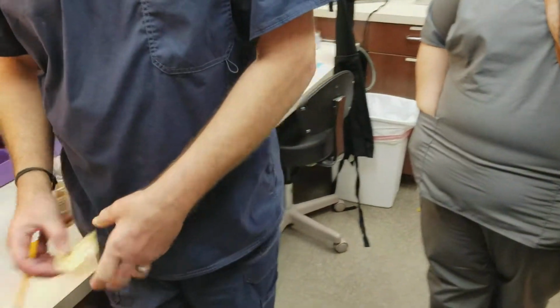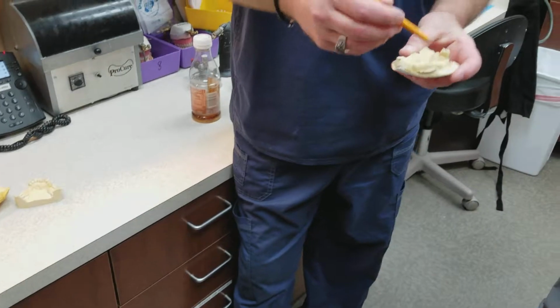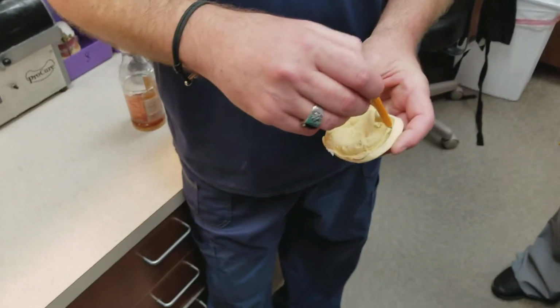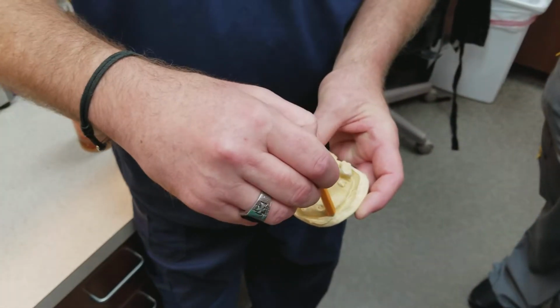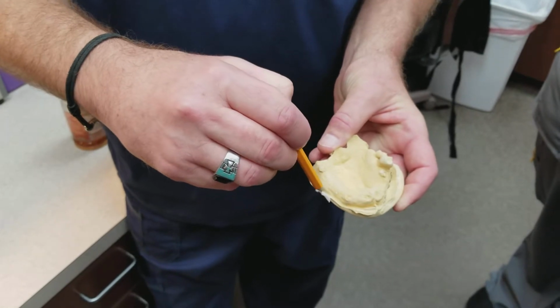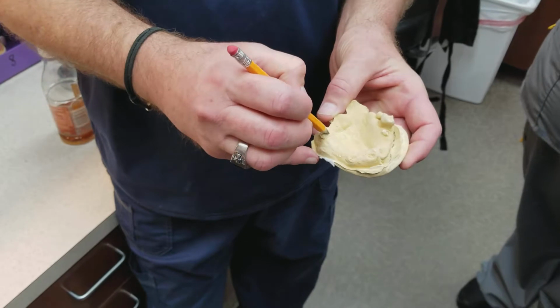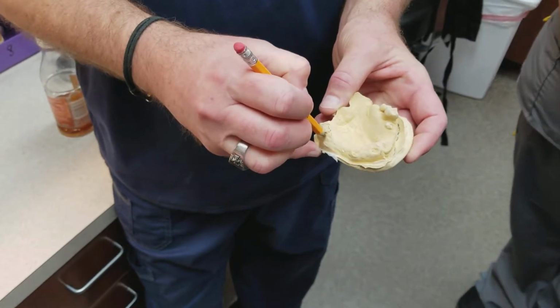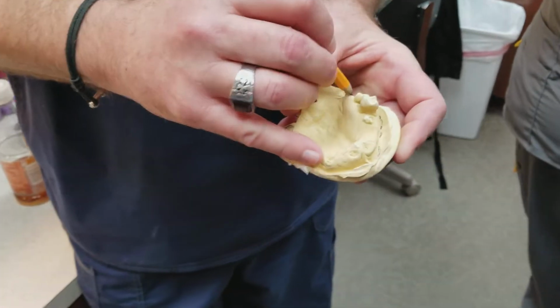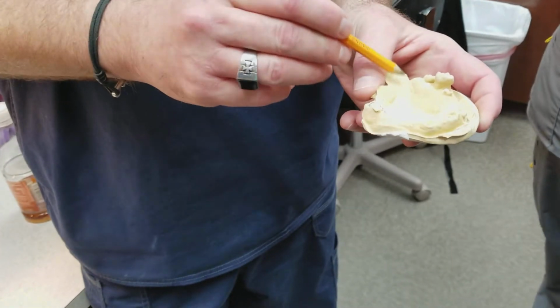Okay, so that's it on the lower. Now on this one, say same for the upper. You want your... this is really shy. Of course, we had to make a custom tray and so forth on this, but the same: the labial sulcus. Okay, so where I'm drawing it right there, you see how it's shy, and so it'd be kind of impossible to make anything. Your tuberosity areas, it's kind of like an egg-shaped or a bullet-shaped type of area right there where the major bone part is. We need that.